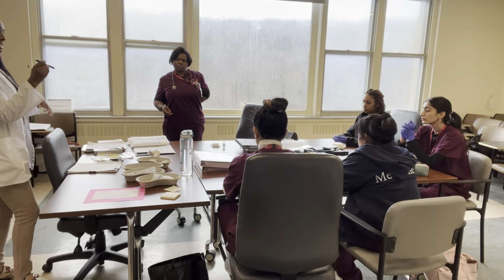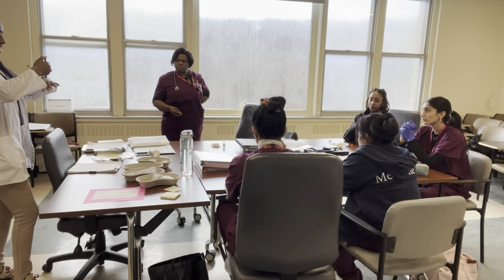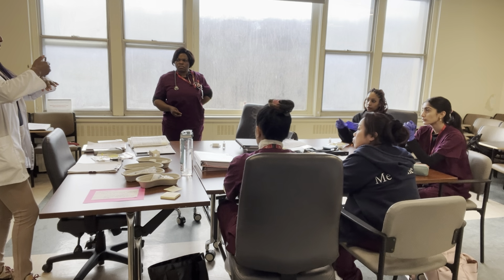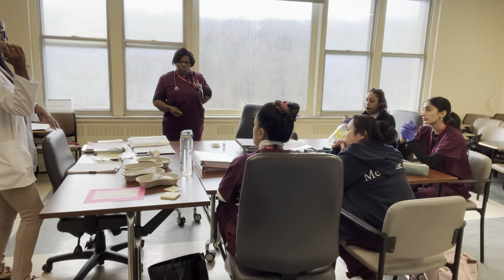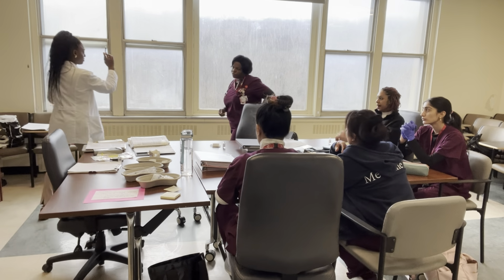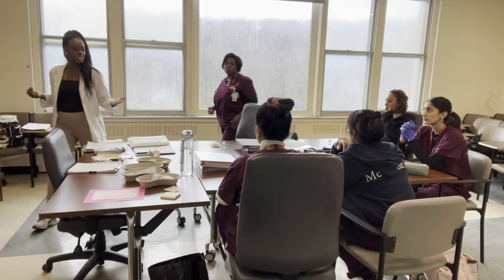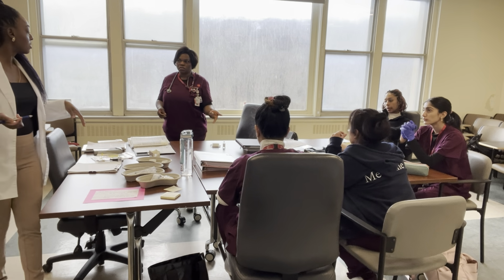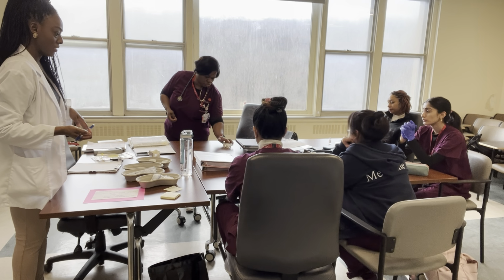So I pretend, okay, this is the syringe, and I'm going to the patient's skin, and then I inject. Okay, I'm going to hold for 5 seconds. Good, I come out of the person's skin. So I come straight out, up, and then I go in. So you can practice even at home without a real syringe and still be okay. Can you take it home? Take what home? This. Right, it's yours. Yeah, I give it to you.